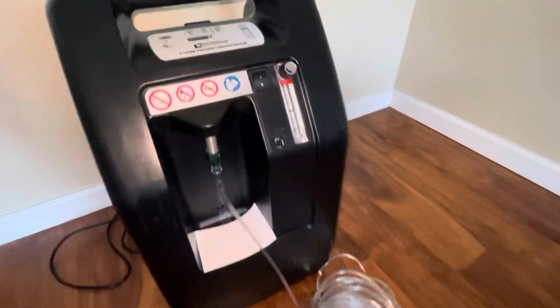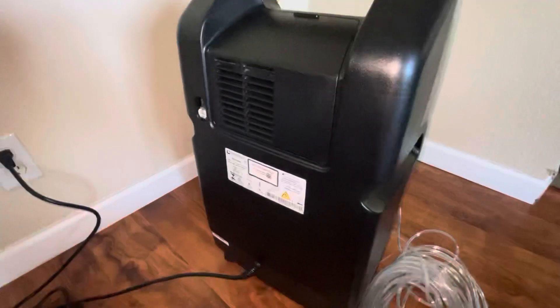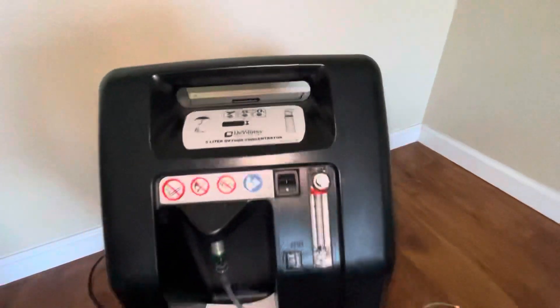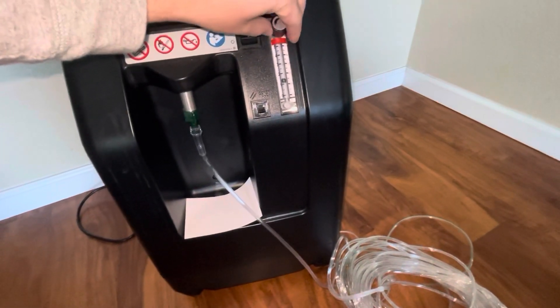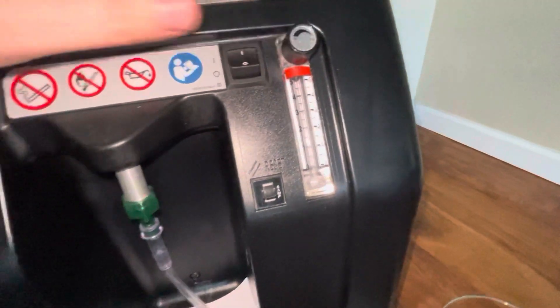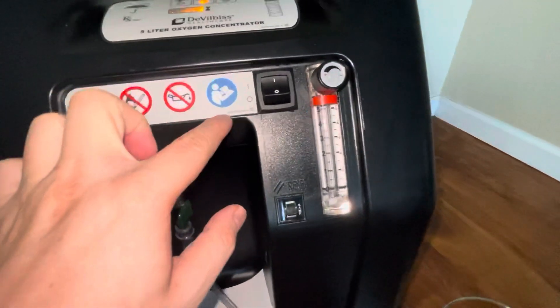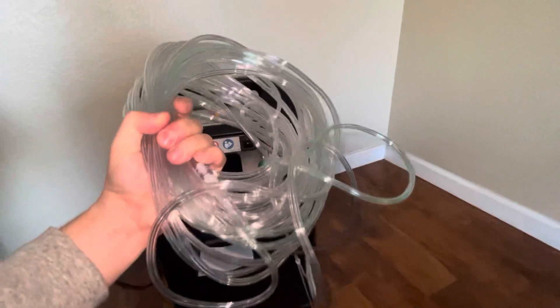You have an oxygen concentrator received for portable oxygen. It has wheels so it can move around throughout the house, which is convenient, but it is heavy so you don't want to carry it. You turn it on and oxygen flow is adjustable — one, two, three, four, up to five liters. It gets oxygen concentration from room air and circulates it out.